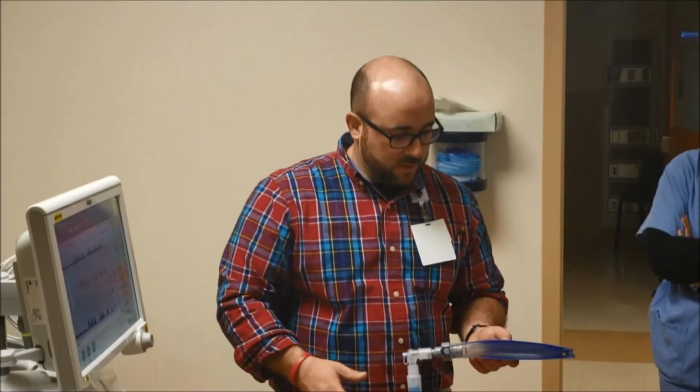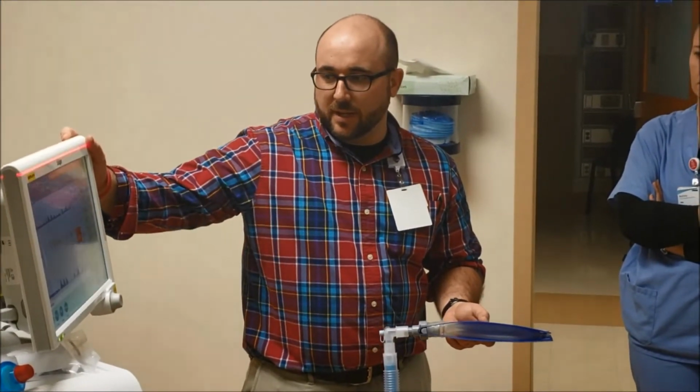It's pretty simple. Now let's say that your patient stops breathing, has this long period of apnea in CPAP. Let's try to make it apneic. Apnea. So no pressure, no flow, no volume. My alarm's silenced from a high rate, but it should alarm again because it's a different type of alarm. It will in a second.